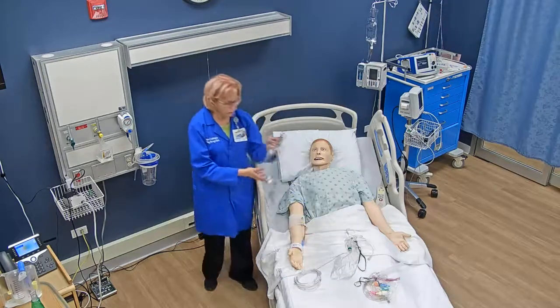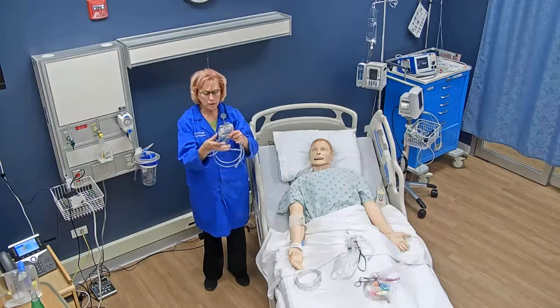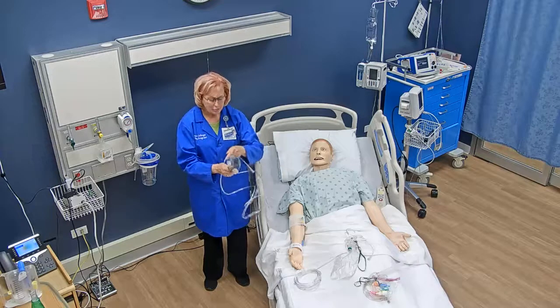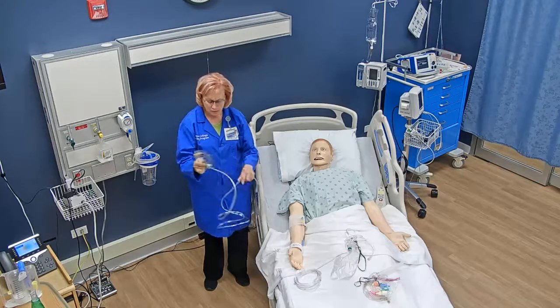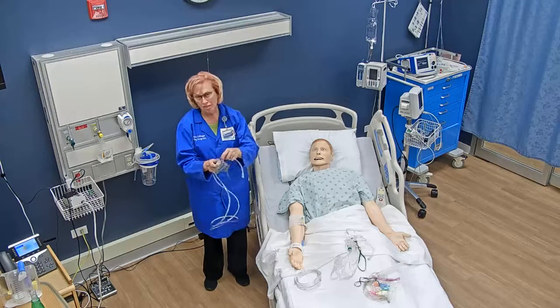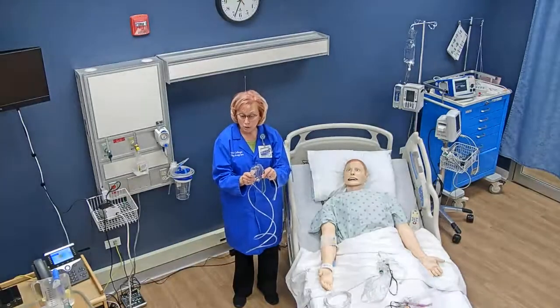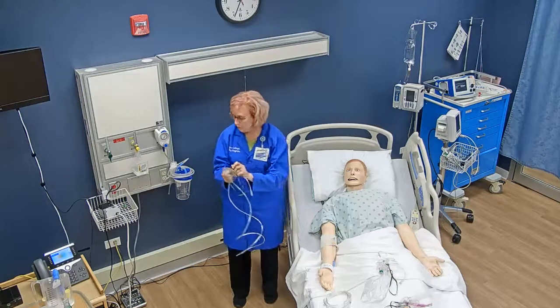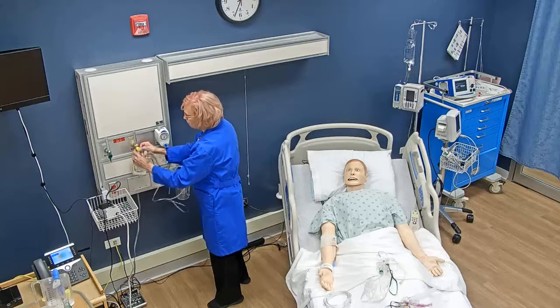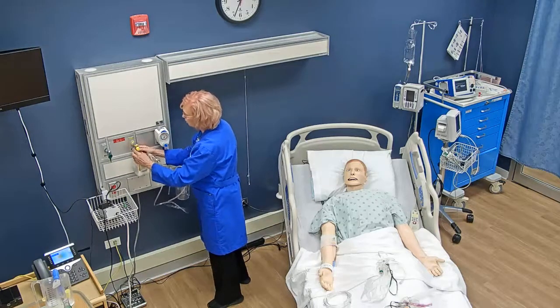This right here is a simple mask. It works very similar to the nasal cannula. I don't see these used in practice very often. You might use this if your patient is a mouth breather and the nasal cannula doesn't work well for them. With this device, you do not use the humidifier or bubbler.